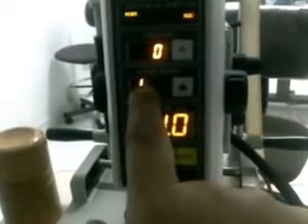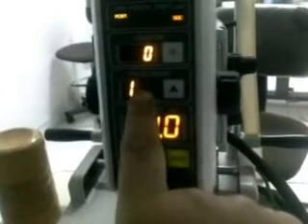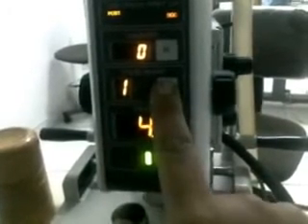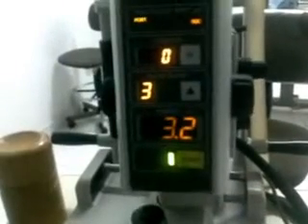This is the pulse burst. Posterior capsulotomy needs 1. You can do 2 or 3 if you do peripheral iridotomy.